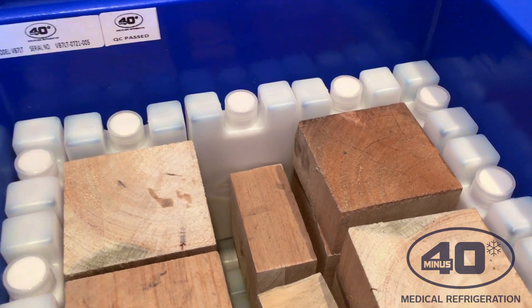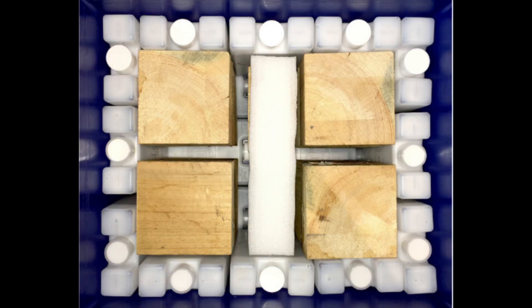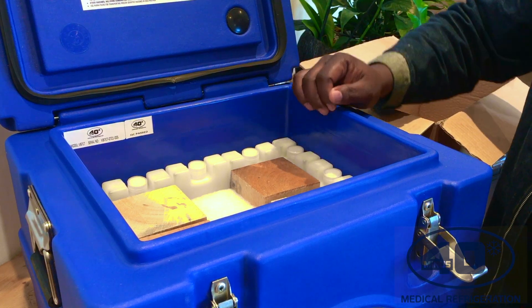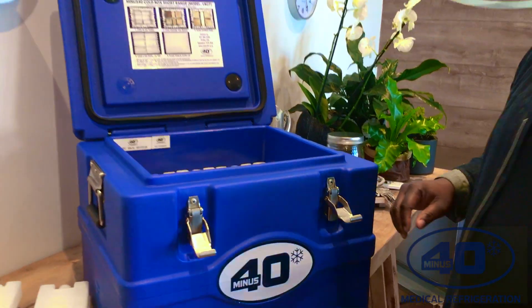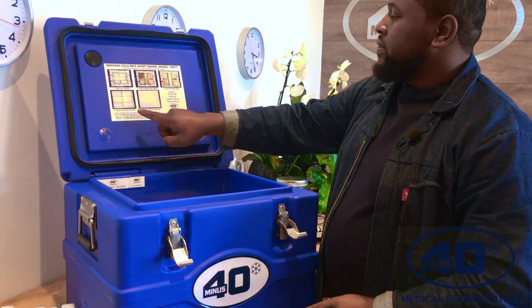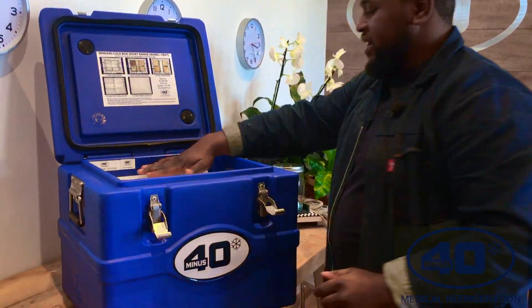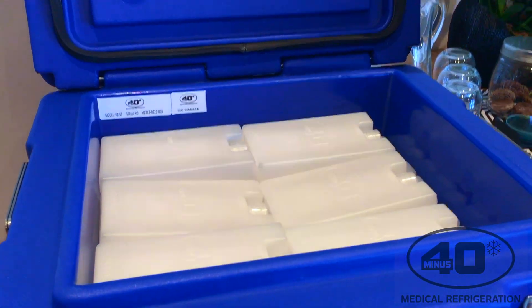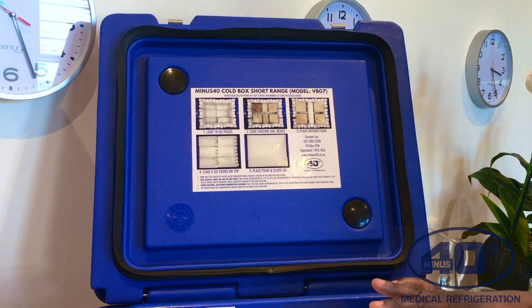As soon as I'm done placing my vaccine boxes, I have to put a divider in the middle just to secure the vaccine between the box — you don't want them to shake at all. I've finished step two and step three. So now I will do step four, which is to load six ice packs on the top. As you can see, I've secured all the vaccine boxes — first the 18, then the 12 around it, and the last six from the top.